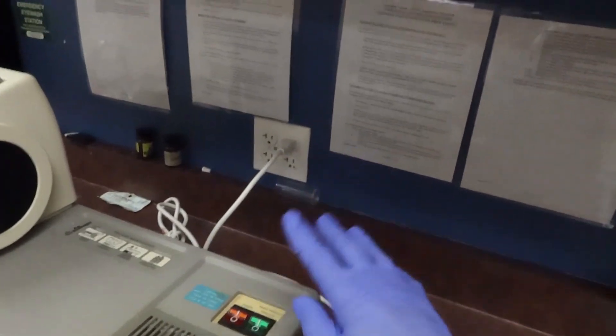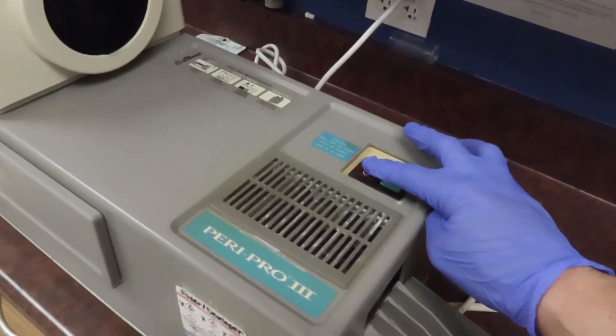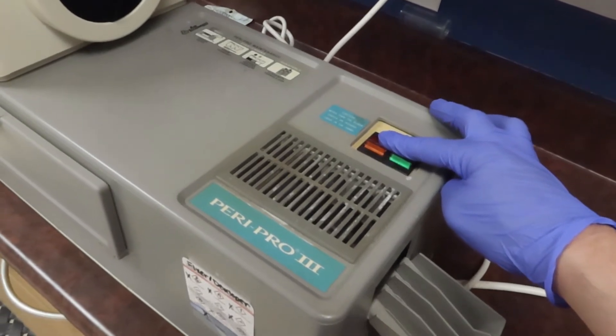Now I'm plugged in. I go and hit the buttons. Man, that sounds great.